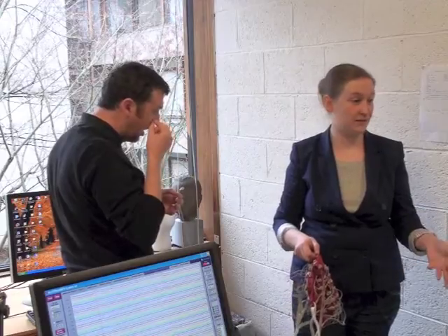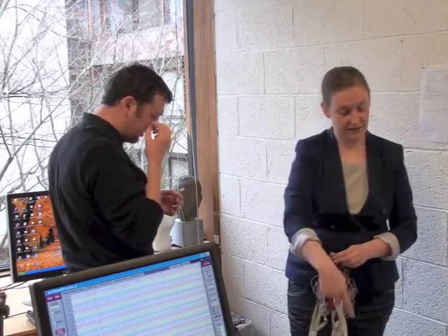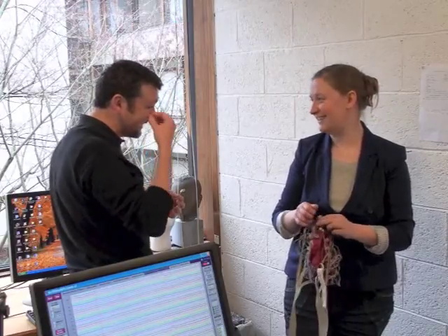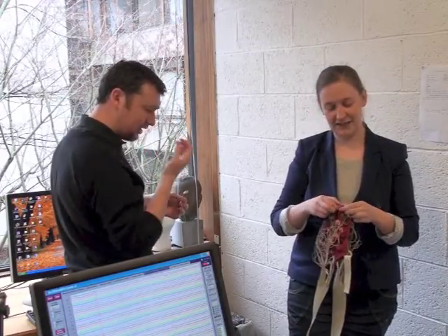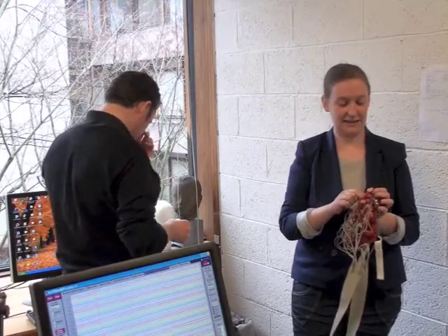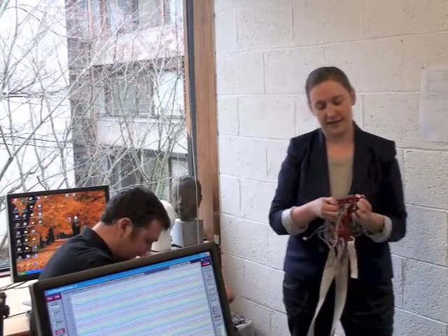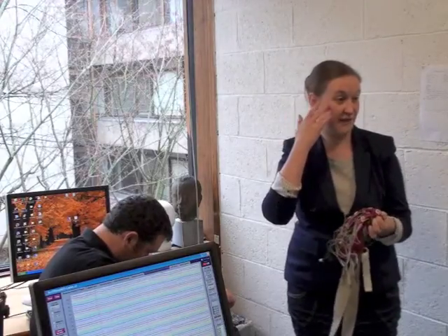You can never use it twice in a row, it won't work, because, as I said earlier, the gel hardens after a while. So what I need to do is take this cap and these electrodes to the bathroom. All of the electrode parts that touch the head or face are washable.